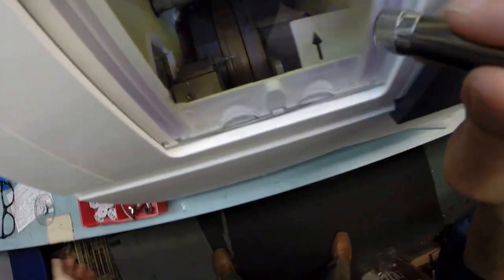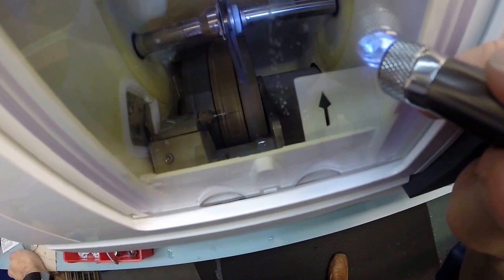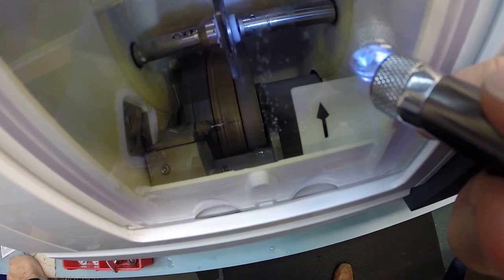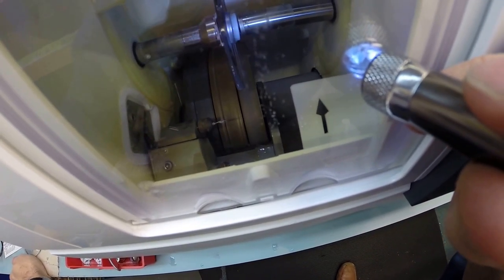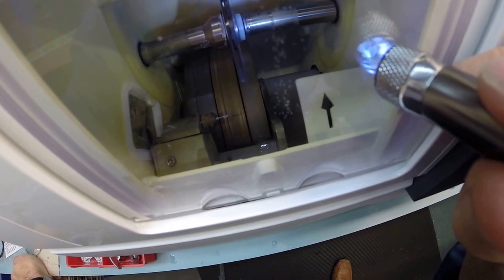I could move the bevel forwards or backwards if needed. You don't have that much edge thickness to worry about, but if you did have strong lenses, this would be a great frame for them.